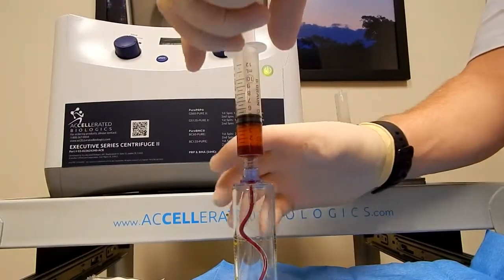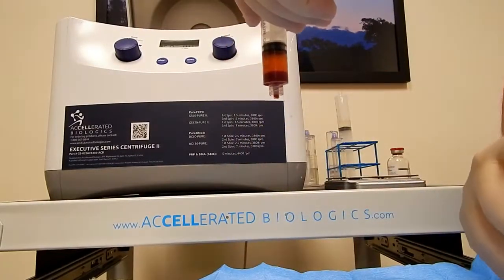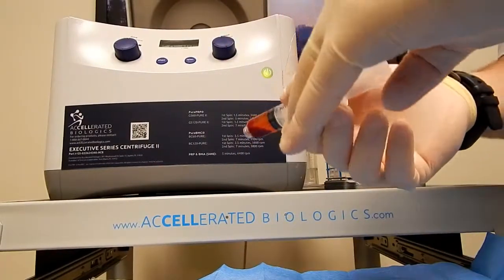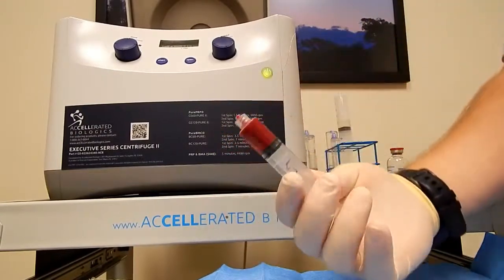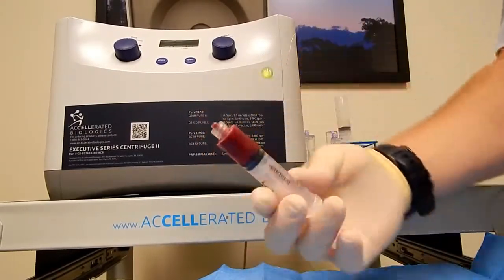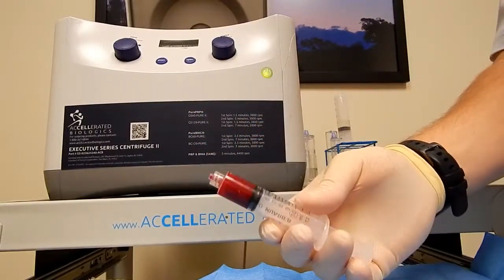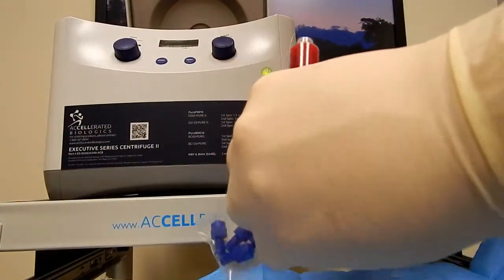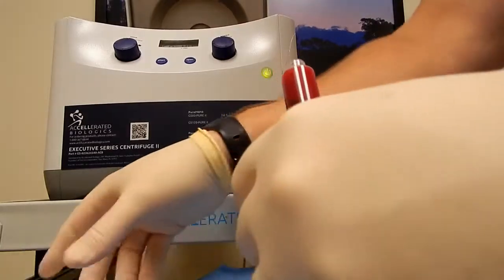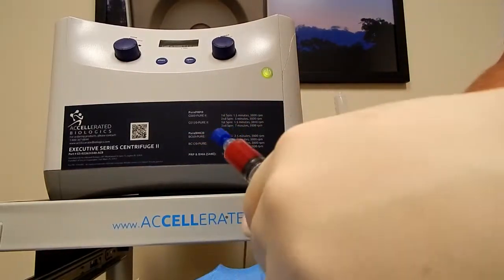Once you have your final volume, you can remove it from the concentrating device and you'll have your 4 cc PRP. Gently mix your buffy coat in, and you'll have your PRP product — good for up to eight hours at room temperature or for immediate injection.